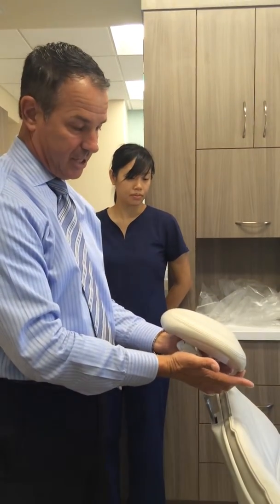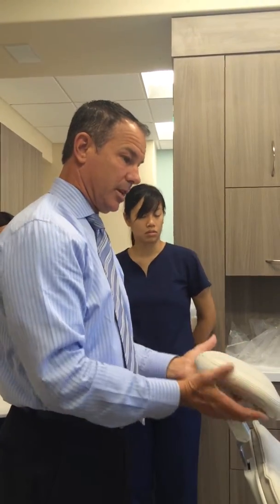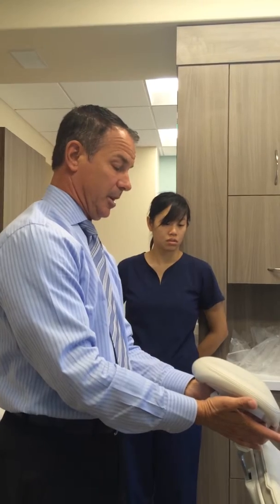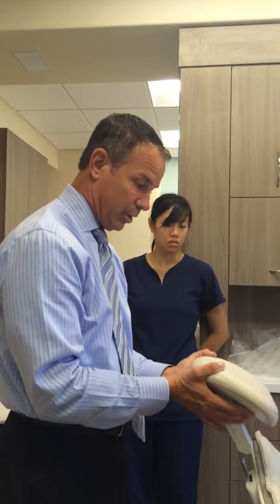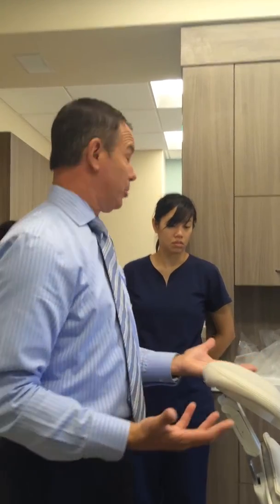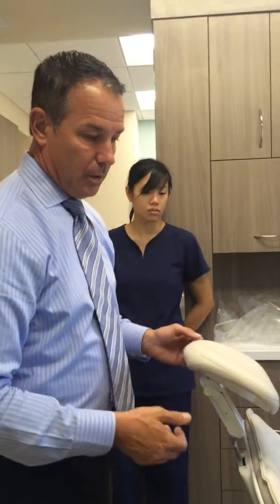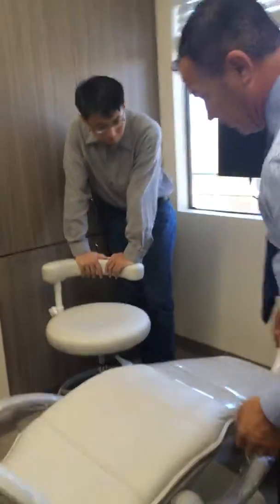Another part of this headrest is I can actually slide this up. Wow. And I can slide this down. This is giving me the ability to articulate the patient's head. So if I'm working in the lower left quadrant, and I want to get a better look at a lingual surface, maybe I just do this and it pushes their head down, or I push it up, depending. Okay. Now that's also based on the patient's mobility. If they're older patients, maybe they don't have the ability to do that. You don't know. Okay.